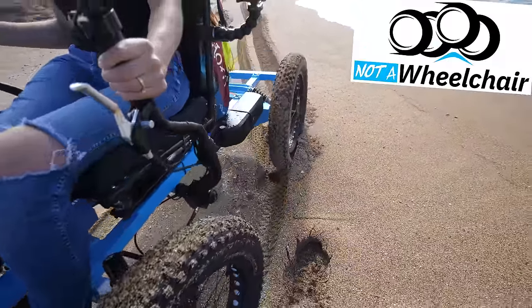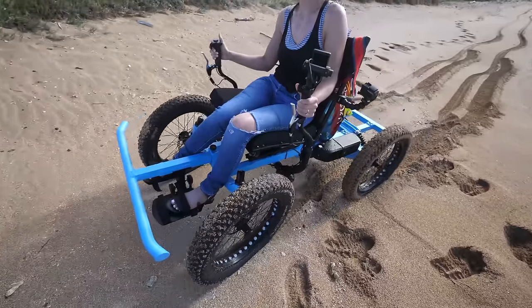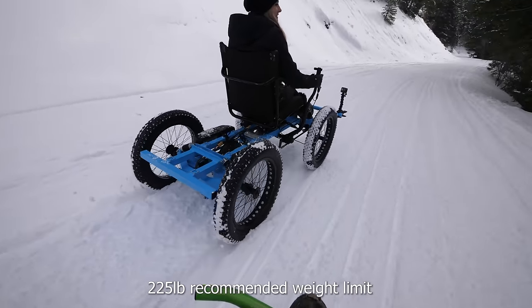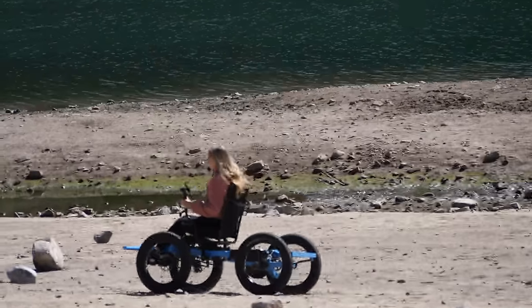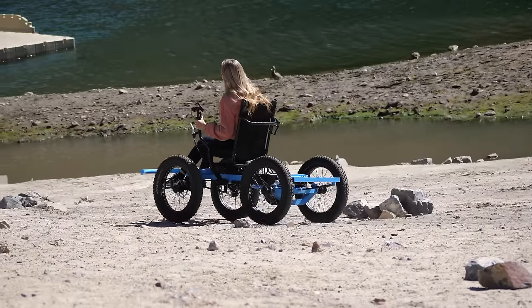This is definitely not a wheelchair and doesn't have the fine tuning or precision that you would normally find in a medical device. It's definitely a bike, with all the quirks and maintenance that comes with all bikes. It's not beach ready and has no IP water resistance rating yet, but maybe at some point in the future. We have to leave some things to look forward to with version 2 whenever that comes out.